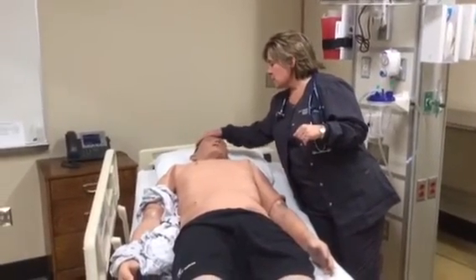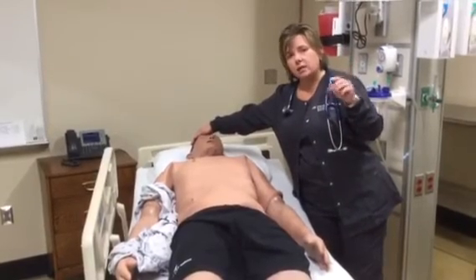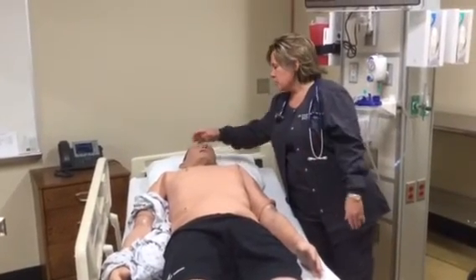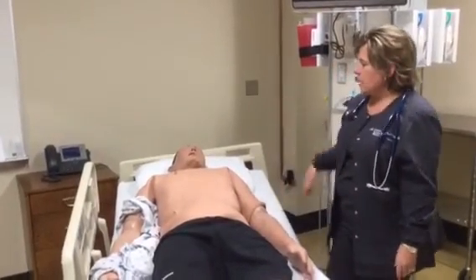One thing I did not mention is that Istan's pupils do react. Sometimes the lights in these rooms are really bright, and so the change is very subtle, but you can check PERRL.